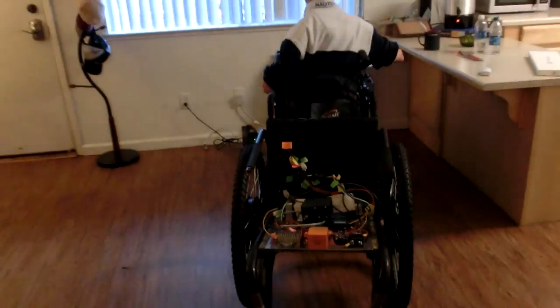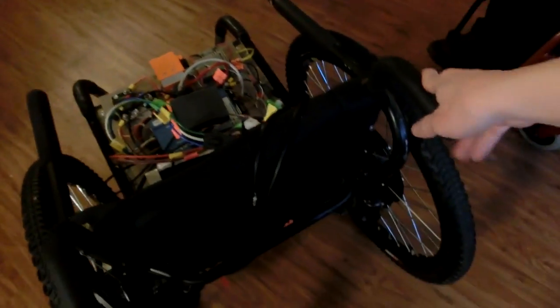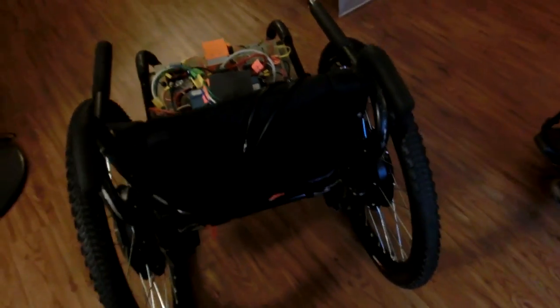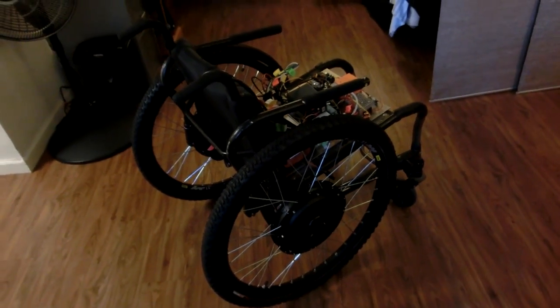And I would say really the wheels themselves the tires are perfectly fine. But there is a little bit that pokes out like just like I don't know half an inch. But that is really good. It's just the hubs, the outer part of the hubs. Yeah just like this little bit right here kind of sticks off. With a little more width it'll give you more stability. Yeah yeah that is so cool.